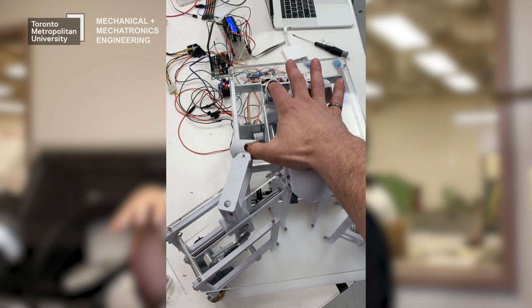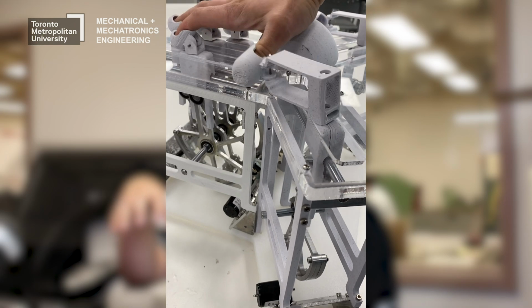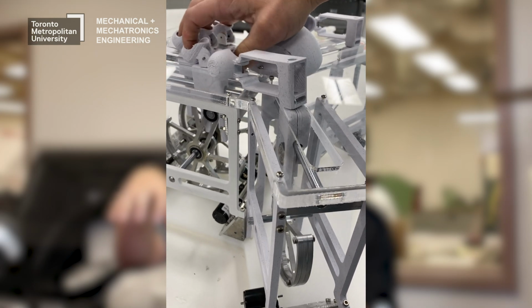So the point of the device is to apply a very fine and precise force profile onto their fingers that would mimic them doing a regular action like grabbing a ball or something like that. So we can apply that similar force profile to their fingers, but at very low magnitudes, and have them work their way up over and over again until they can build their strength back up. And that's basically how we perform the rehabilitation on their fingers and get them back to 100% again.